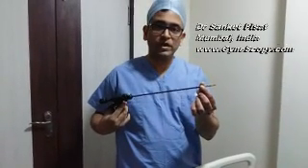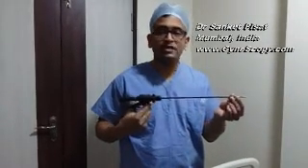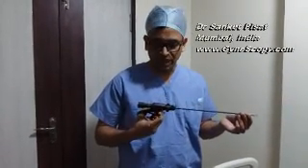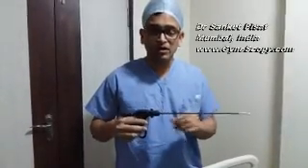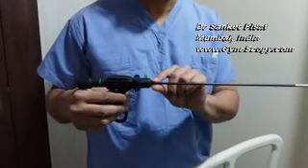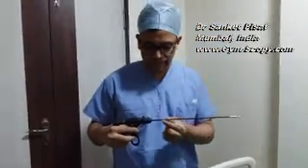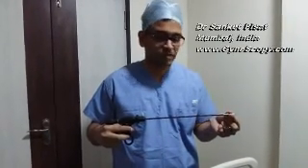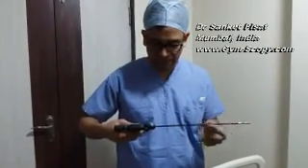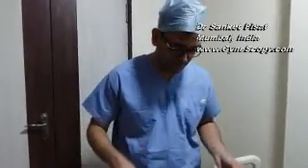Also make sure that opening and closing the instruments results in the jaw opening and closing properly, otherwise you will have to spend time doing this after the case is on. Particularly in the case of instruments that use electrical power like a bipolar or a monopolar instrument, make sure that the insulation over the sheath of the instrument is intact and that there are no kinks or exposed areas along the instrument from where the current may leak.